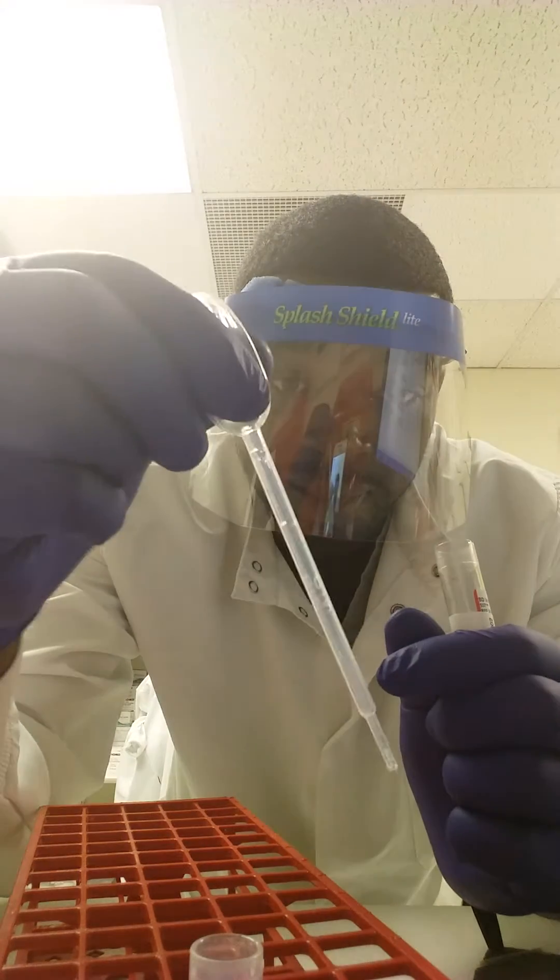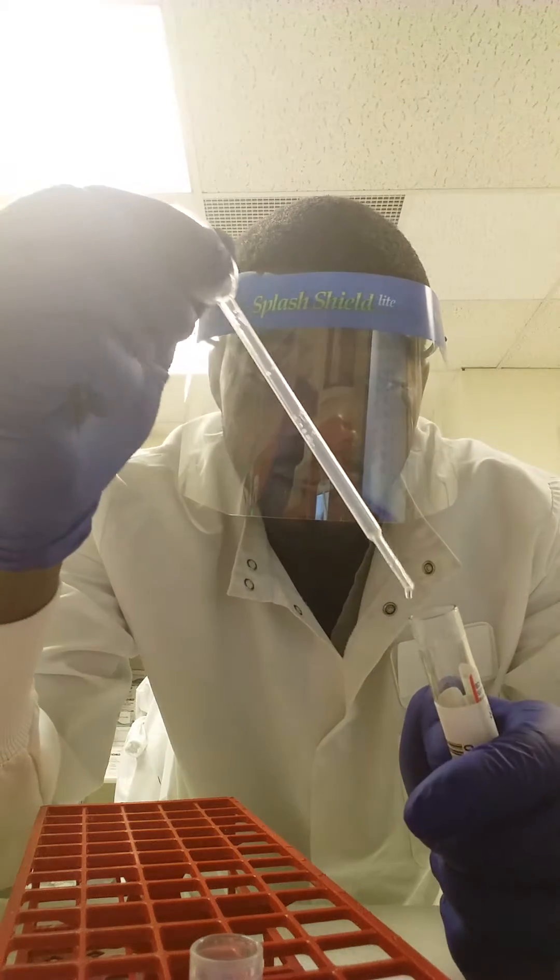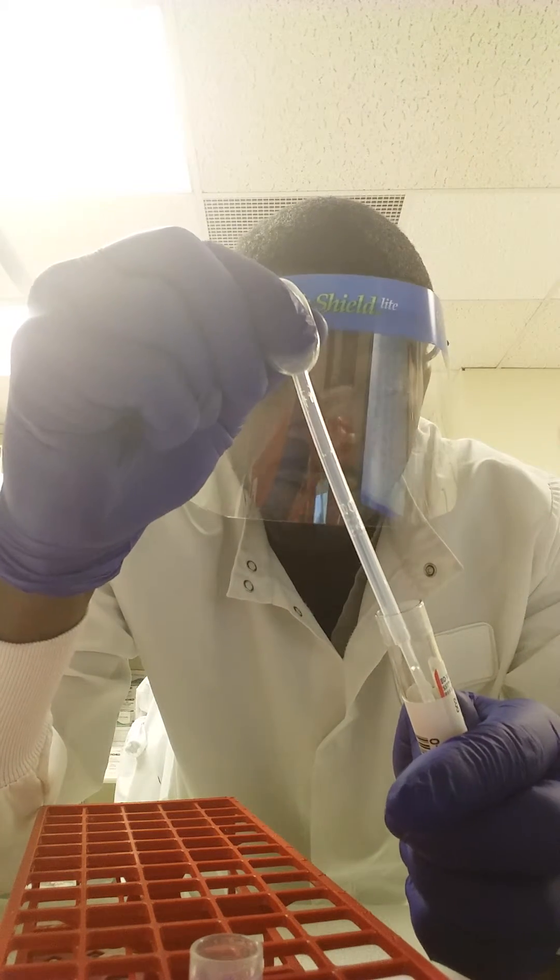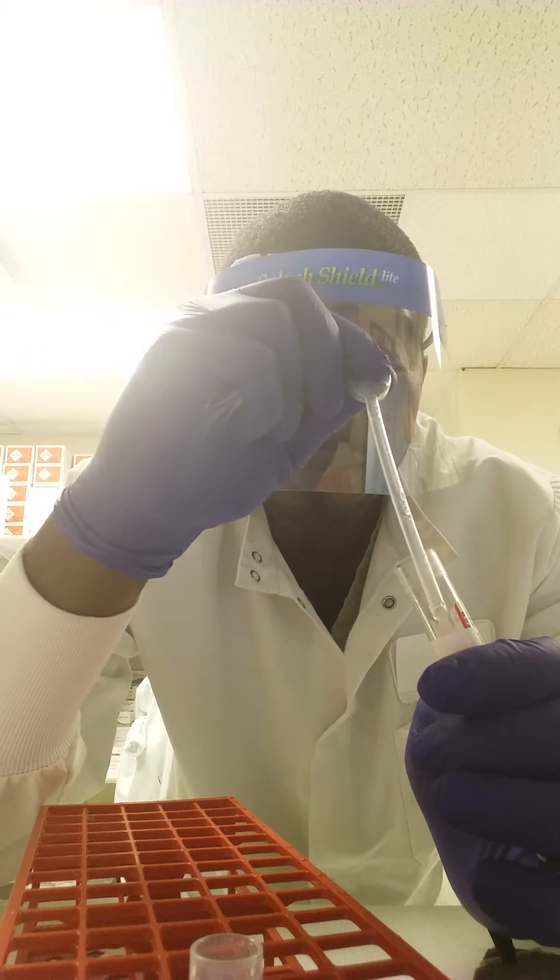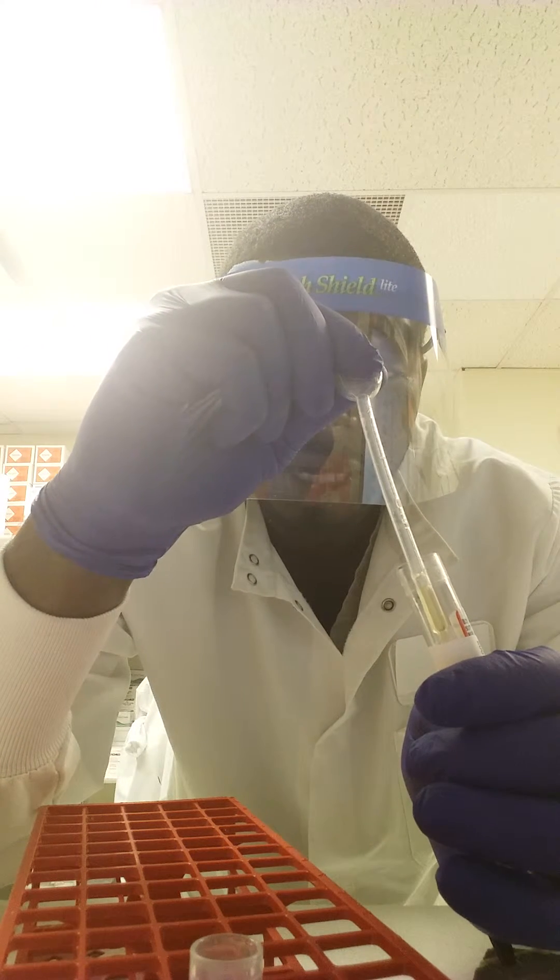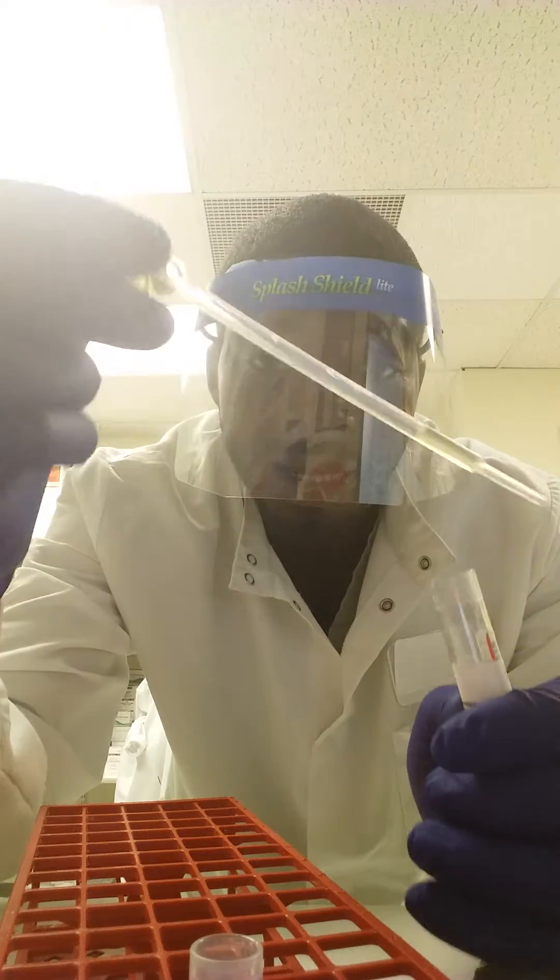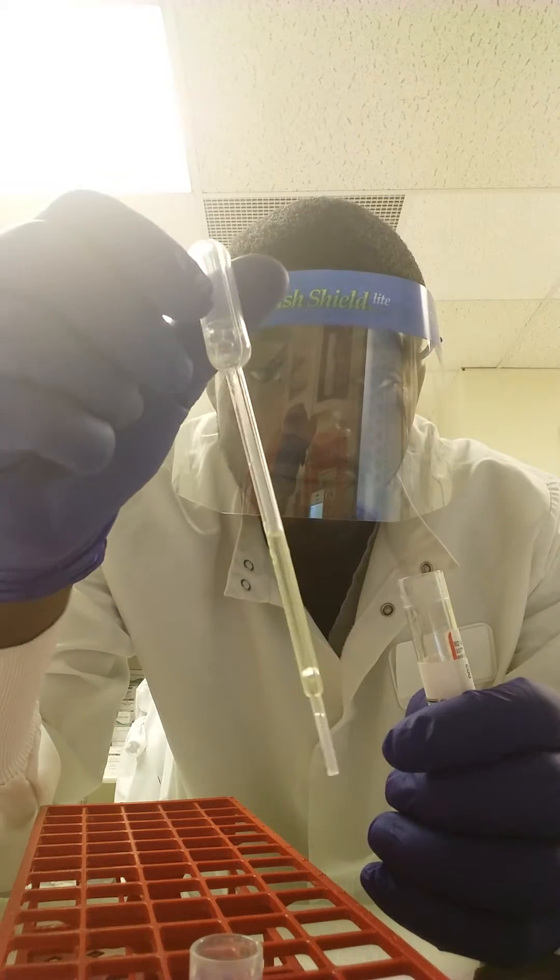Again, you squeeze the top of your pipette, you put it inside the tube, you only want to go down about two inches. You gently start to let go of the top and there's your serum.